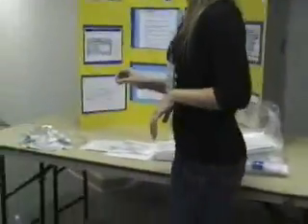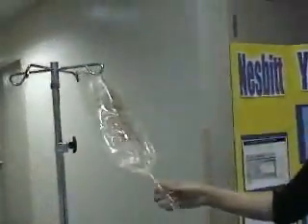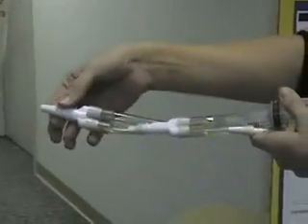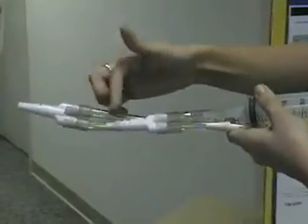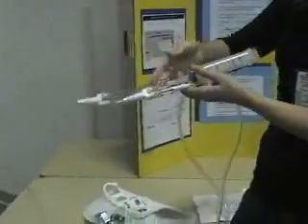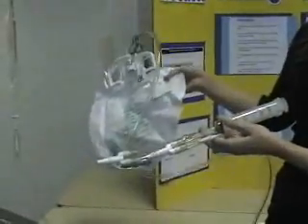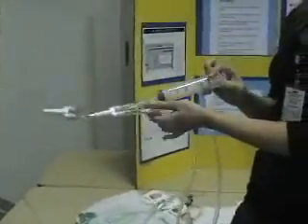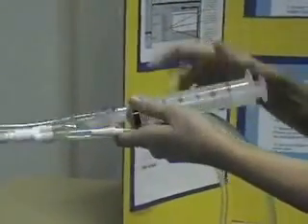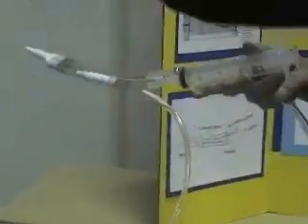What I'm going to show you is the setup of it. It comes with a 3,000 cc bag, the actual tubing for the irrigation, and then you'll see the setup right here. This part is going to be hooked up to the patient, and it's going to be a three-way system. You're going to have the drainage bag, which goes right here. That's going to drain all the stuff that you irrigate out into the bag, and then you're going to have the 60 cc syringe right here. That's going to help irrigate the bladder, and then you're going to actually have this part hooked up to the irrigation bag.